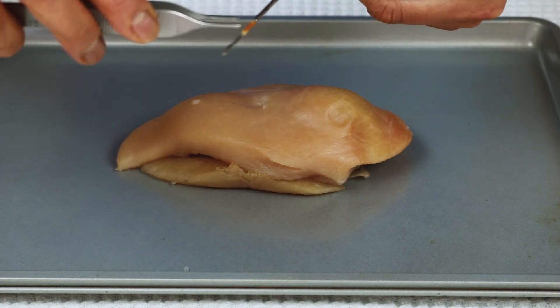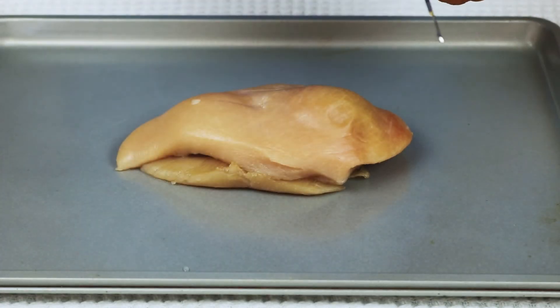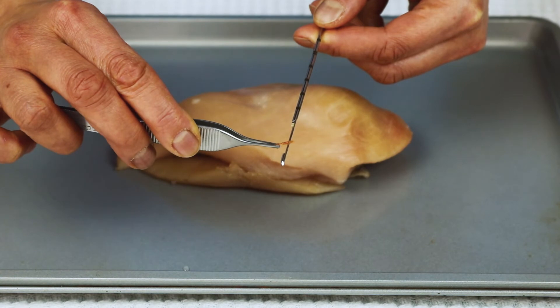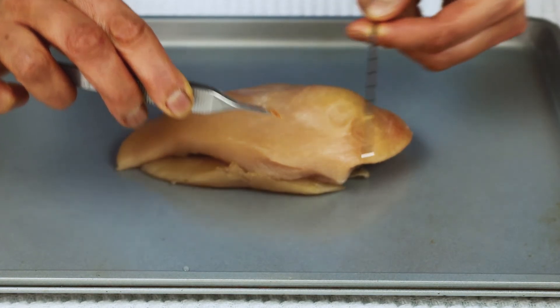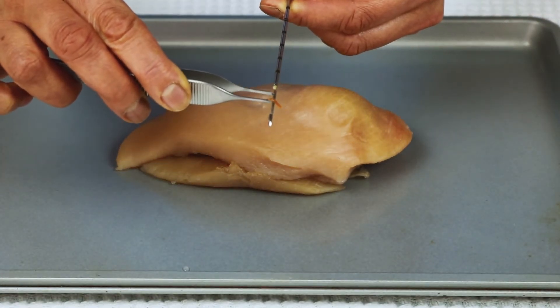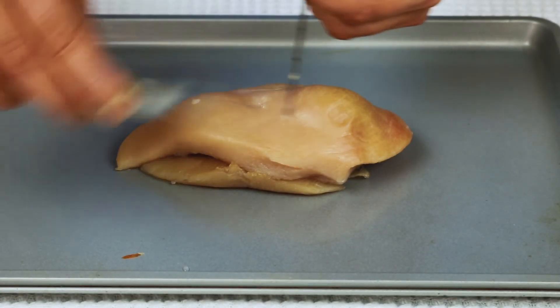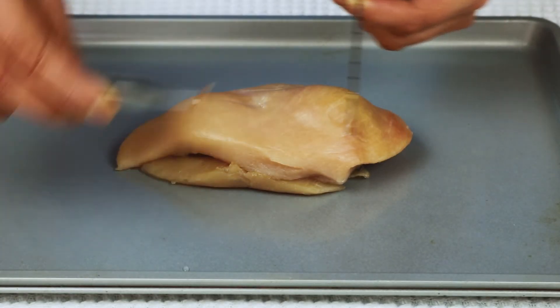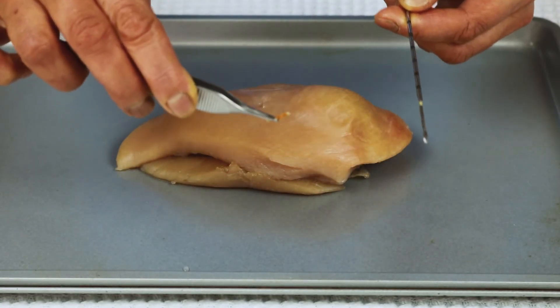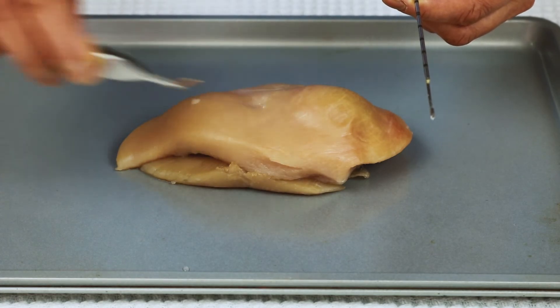You can see it's the inside piece — in this case, the inside of the olive. I have olives stuffed with pepper inside, and this red part is the core biopsy that is removed. This core biopsy is then placed in a container and sent to pathology for analysis.